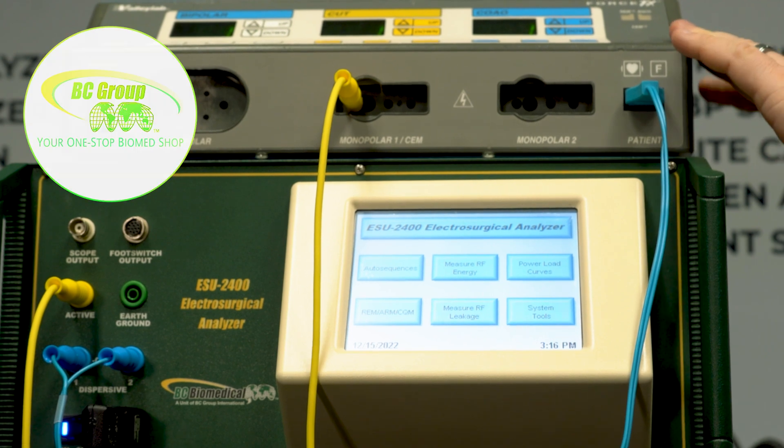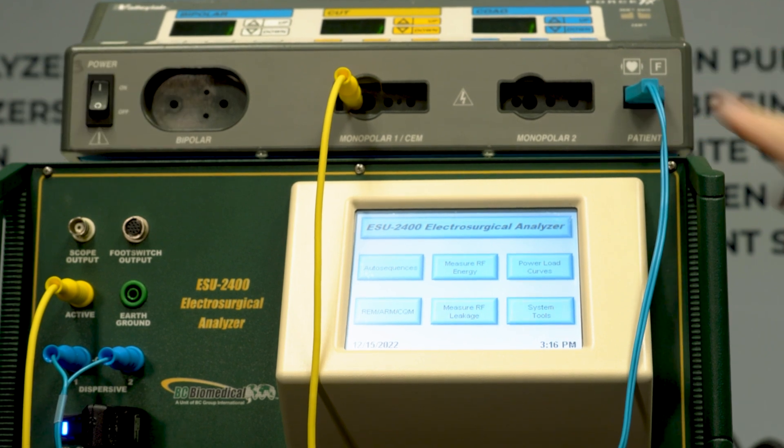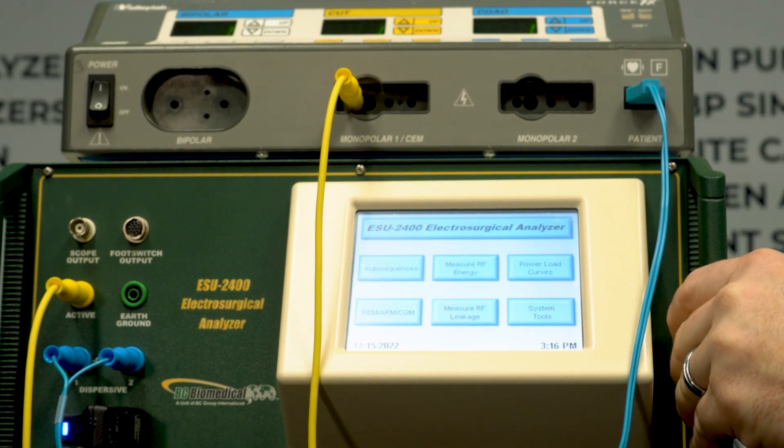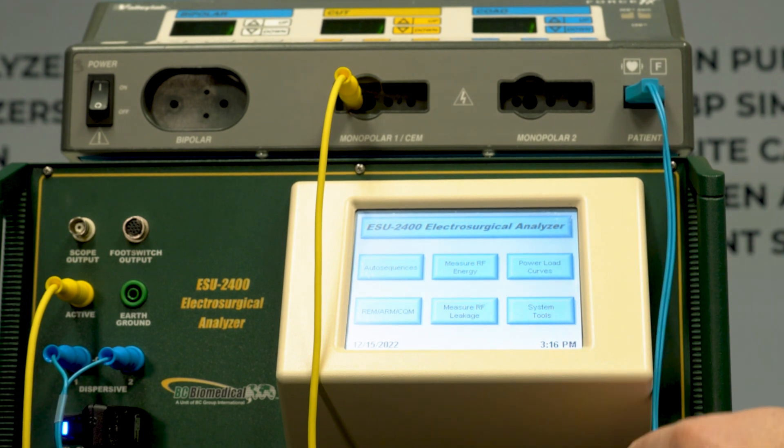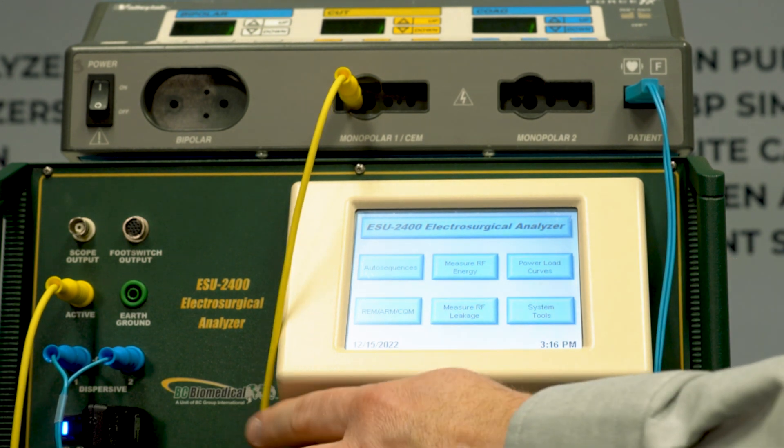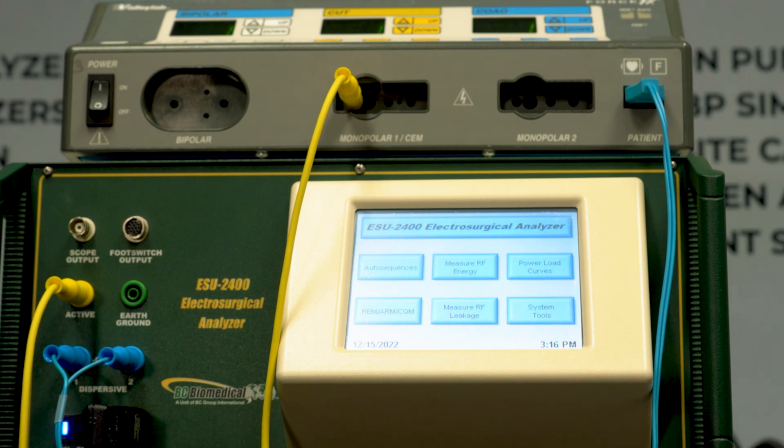Here we have the ForceFX generator that we're testing and the ESU 2400 that we're going to use to analyze the outputs. Now I've already got the cables connected. We've done other videos for how to make the connections and which cables to use.